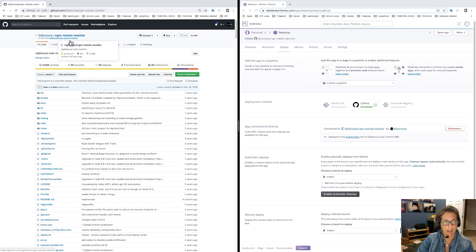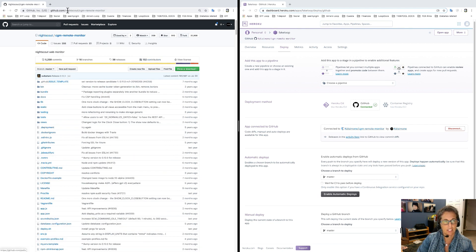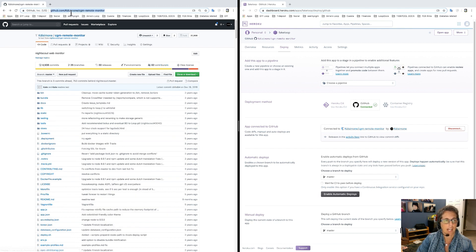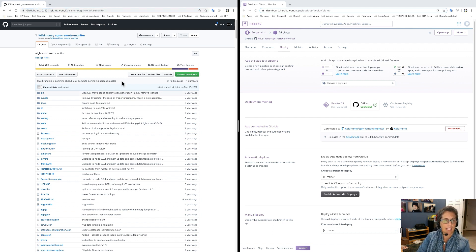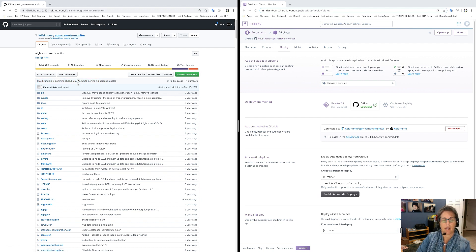Regardless, you want to make sure you have your account name in the URL and not Nightscout's. If you have Nightscout showing in the URL, that's not the one you want to be working in. Make sure it has your name in that URL. I can tell my version of the Nightscout code cgm-remote-monitor is old because it's 753 commits old — it tells you that right there.